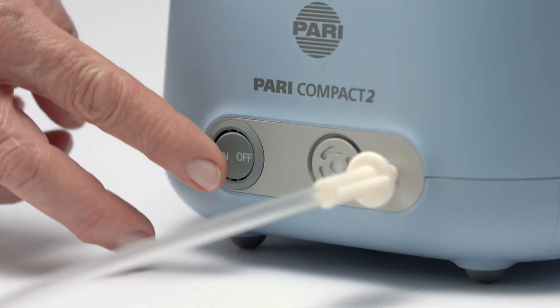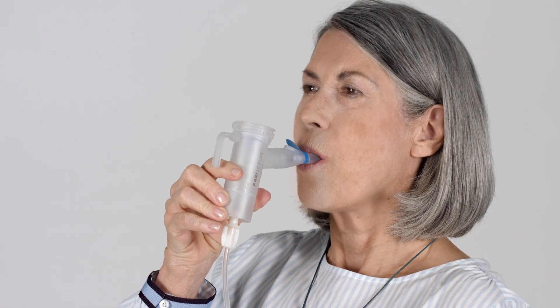Sit upright in a relaxed position and switch on the device. Hold the mouthpiece between your teeth and close your lips around it. Breathe in through the mouthpiece slowly and deeply. Then breathe out in a relaxed manner.